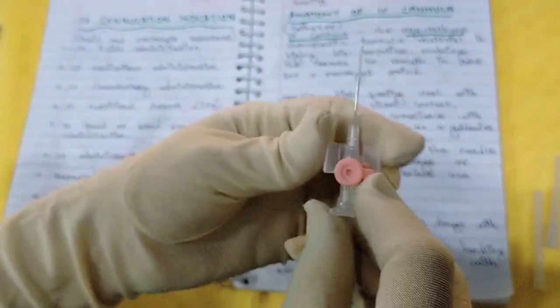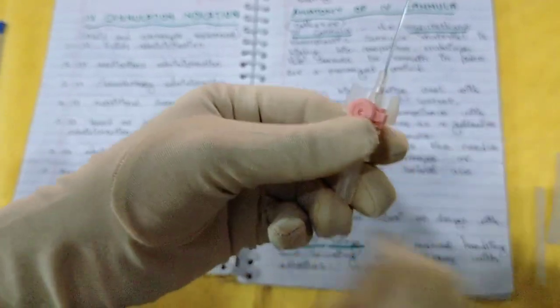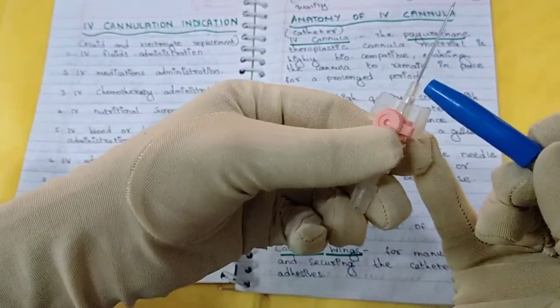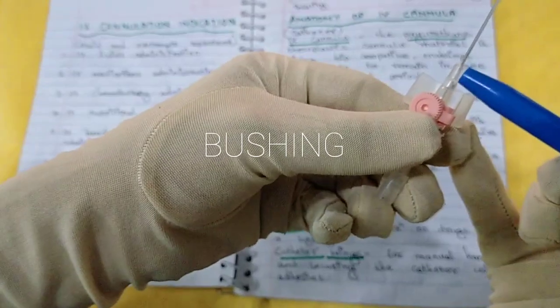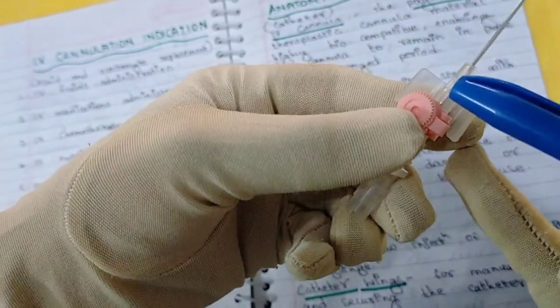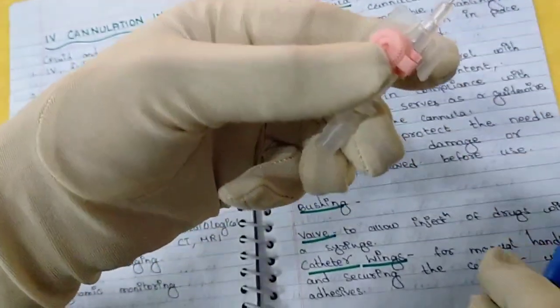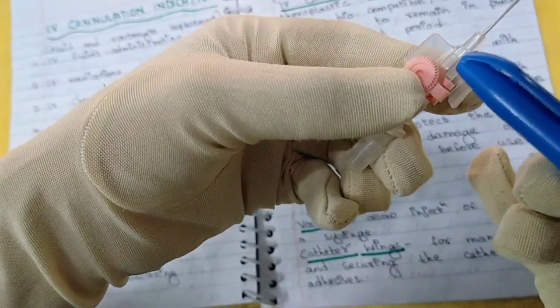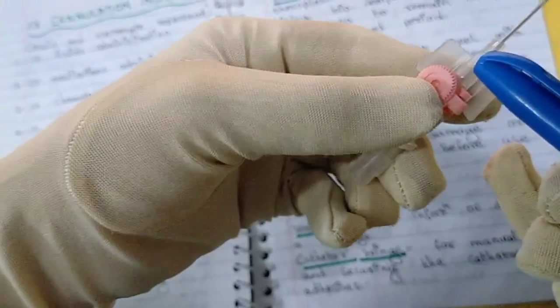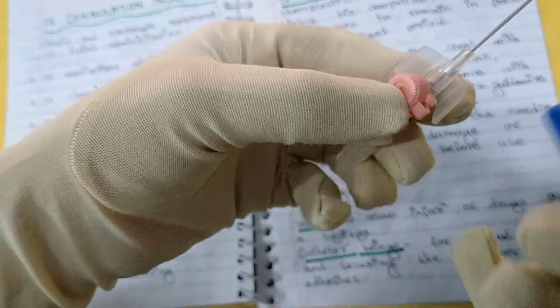Then next this part is called the bushing. And inside here there is a valve — V-A-L-V-E. There is a valve inside which allows injection of drugs with a syringe directly through it.